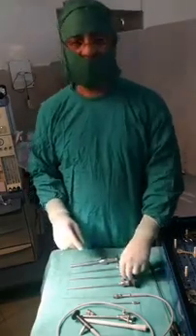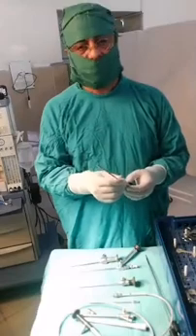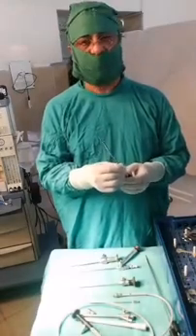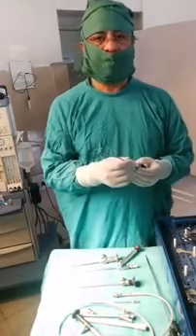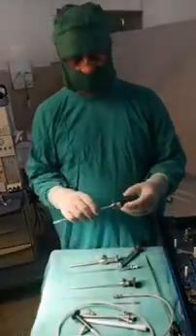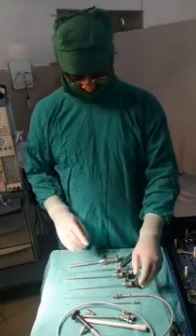Then we have endoscopes which are 4mm in diameter. They are used for skull base surgery and the transsphenoidal approach, and also diagnostically for the posterior fossa or while you are in the ventricular system. They come in different angles: 0 degree, 30 degree, and 70 degree.